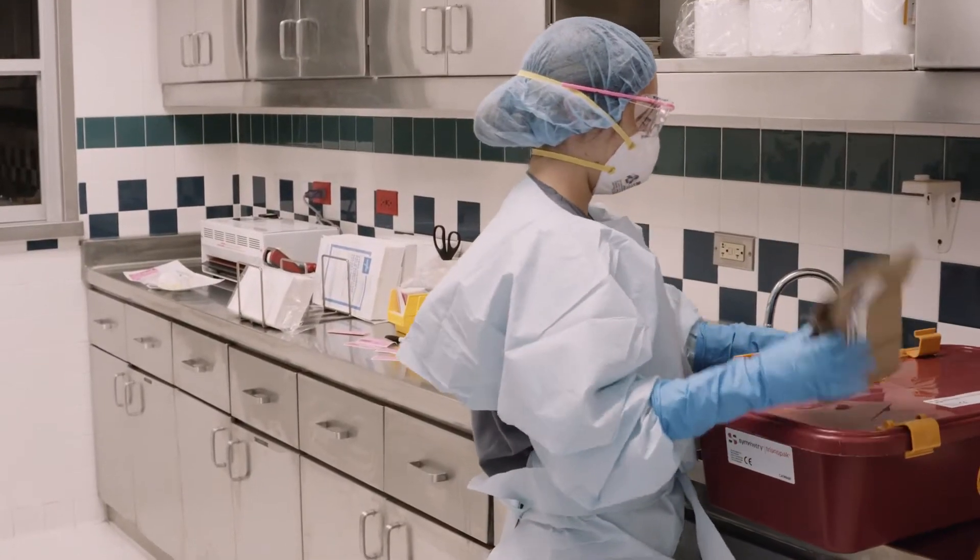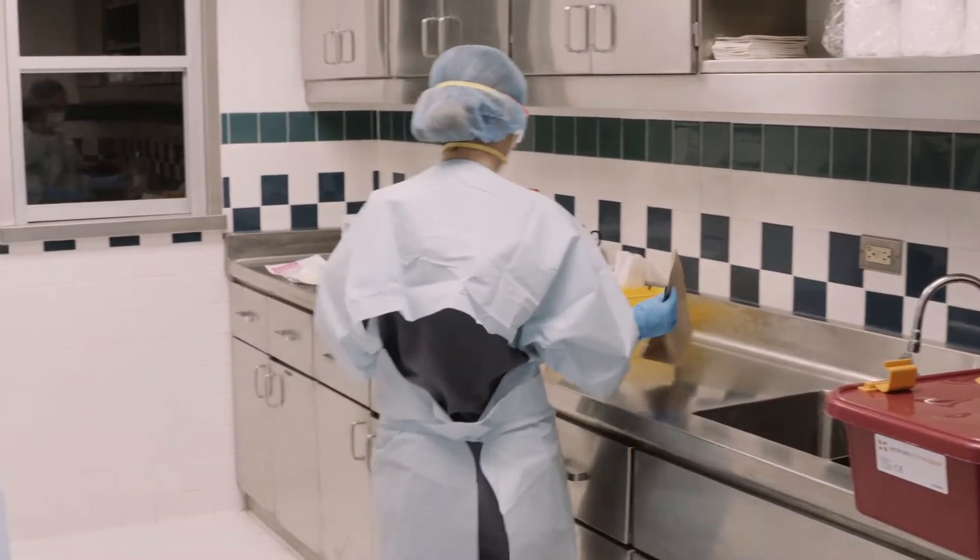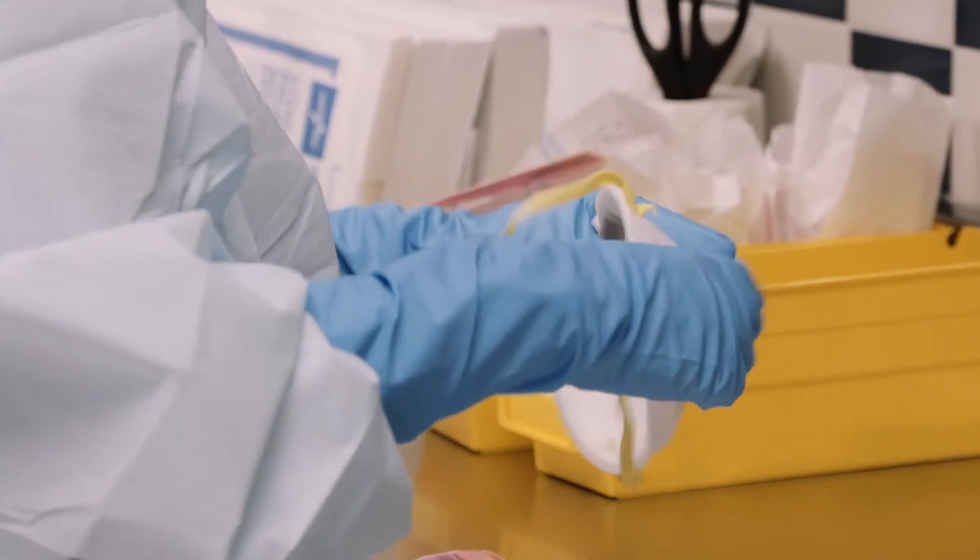In a secure area, employees wearing protective equipment visually examine the masks.